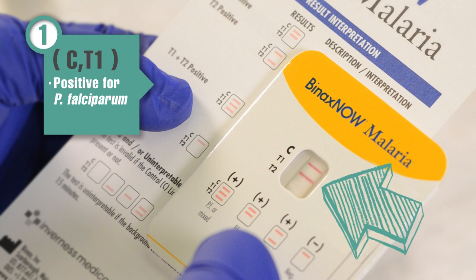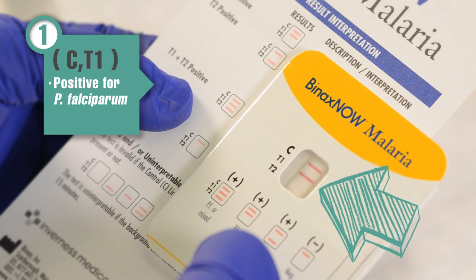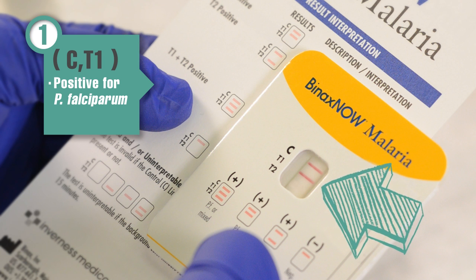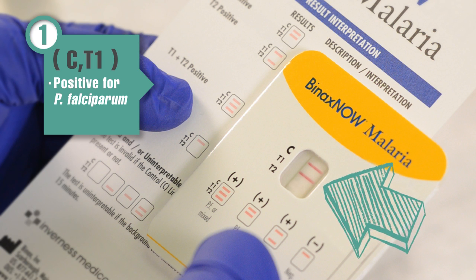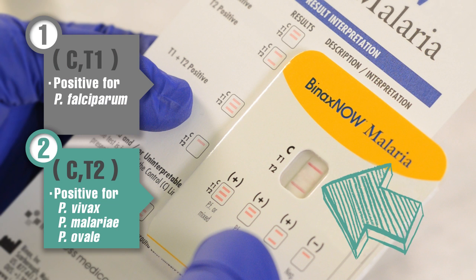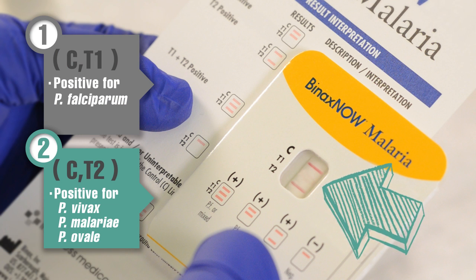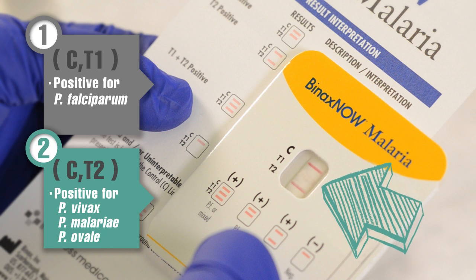If the test is positive, microscopy can be used to estimate the parasitemia and confirm the infecting plasmodium species. A positive RDT provides sufficient information to initiate treatment for malaria, which can be life-saving.